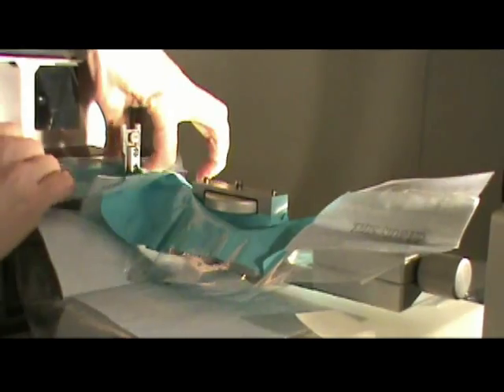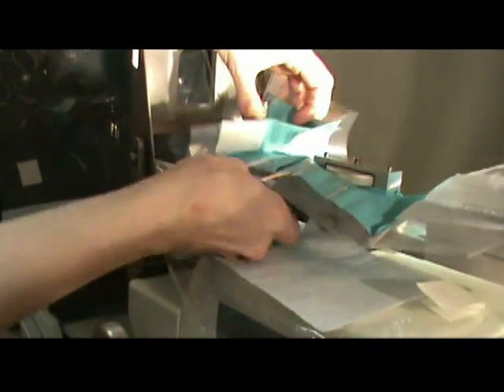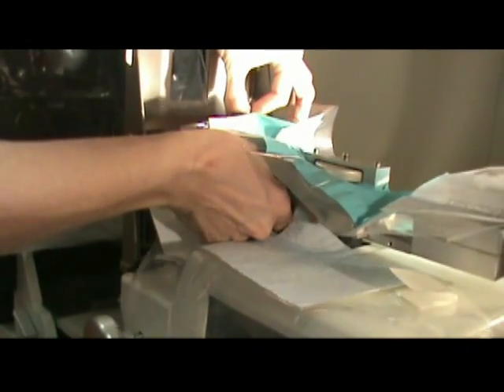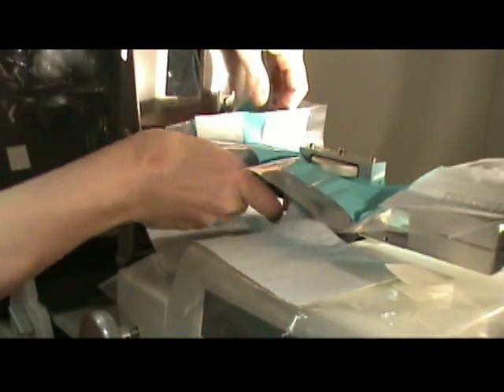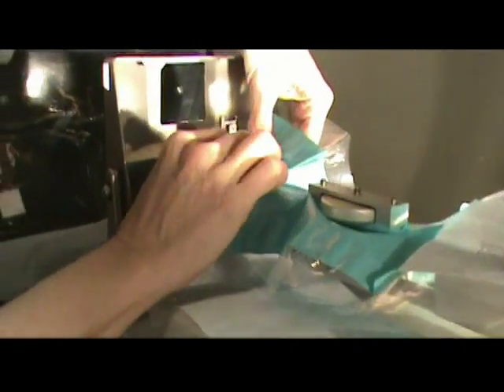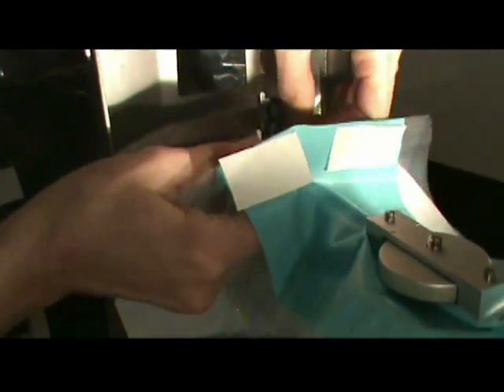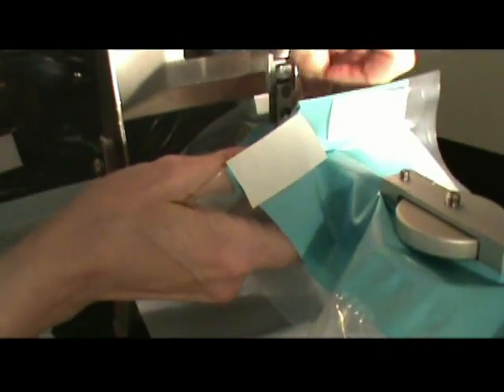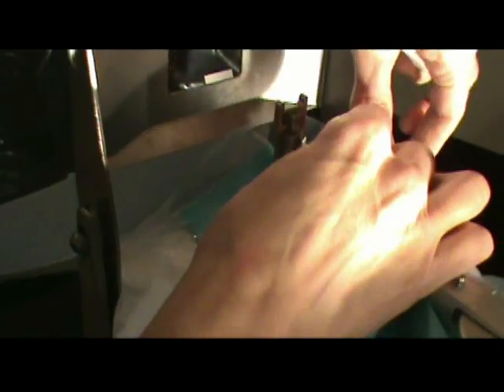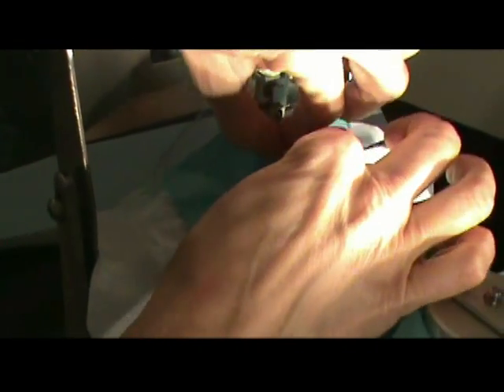This has a little pocket area which helps contain the fluids. The little tape right here — you can remove this and it will close this gap, so it makes a very tight fit. You want these to be close together and you can make this tight so it makes a nice tight fit around it.